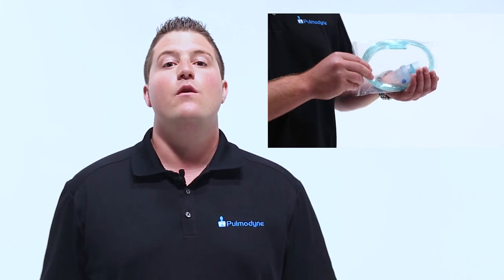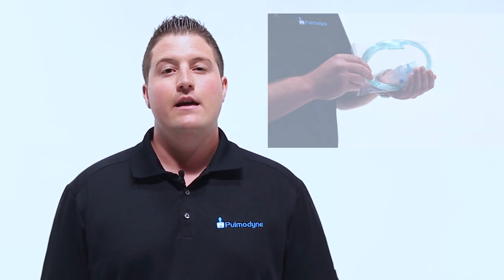The GO-PAP comes with an integrated nebulization port, which is standard on all devices. It's a closed system until the canister is inserted into the device. Circuits have the option of coming with or without the canister.